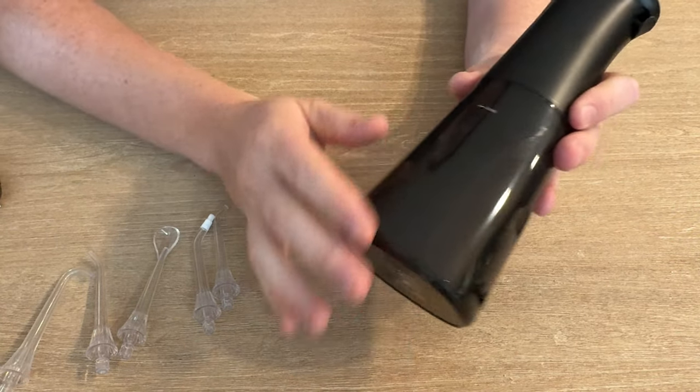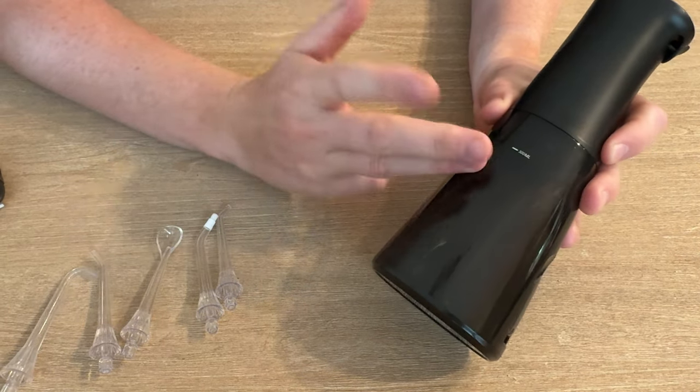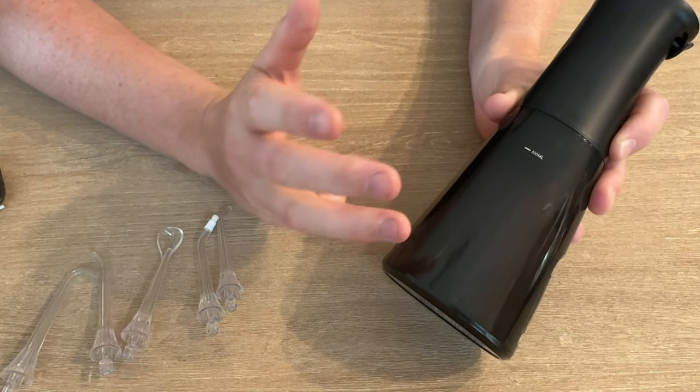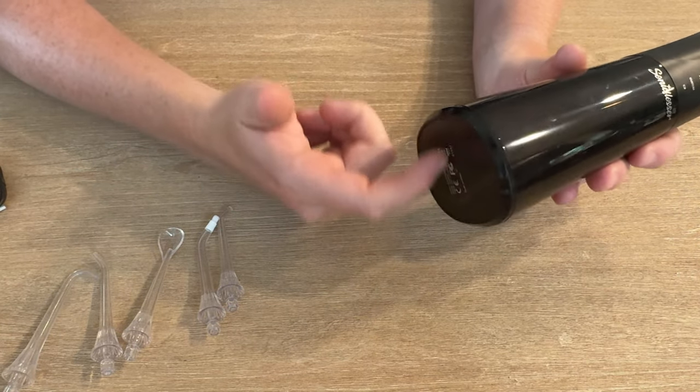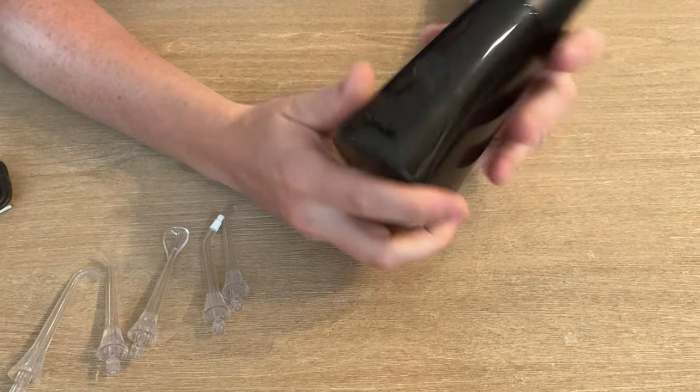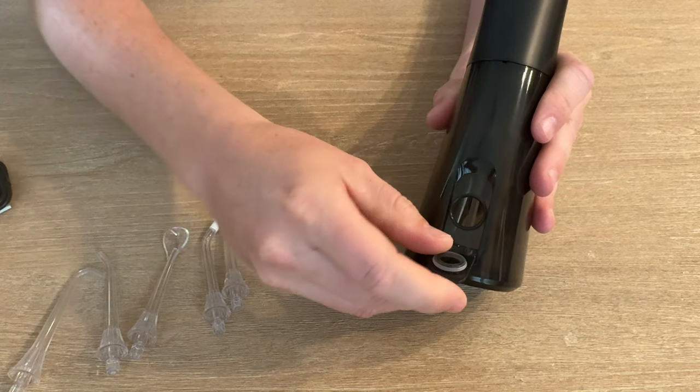It goes up to 300 milliliters, so it has a lot of volume for your liquid. Then it has this kind of straw thing at the bottom and has the refill down here.